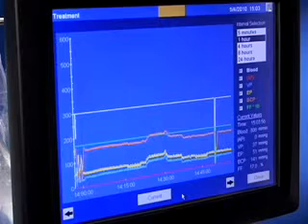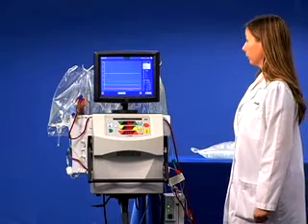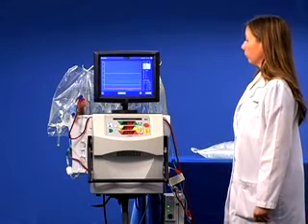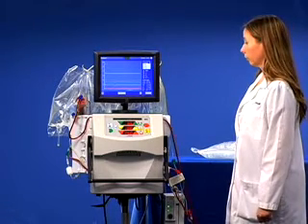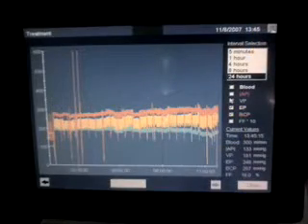Changes in these pressures indicate clogging or clotting but will not predict when clotting will happen. The pressure changes that you are observing will indicate which alarm you will see with imminent clotting. For example, if your venous pressure is decreasing and your effluent and balanced chamber pressures are increasing, you may see a series of low venous pressure and high balanced chamber pressure alarms.